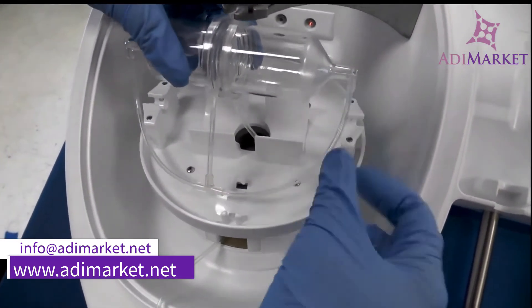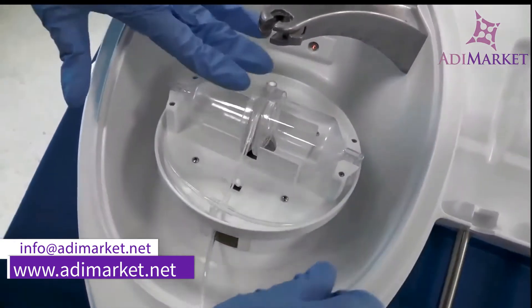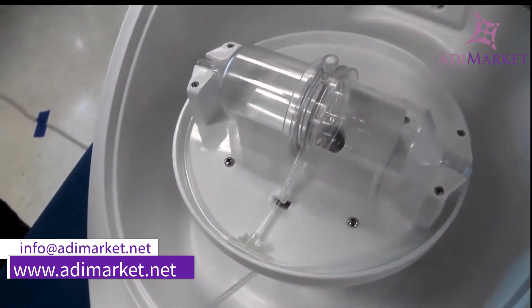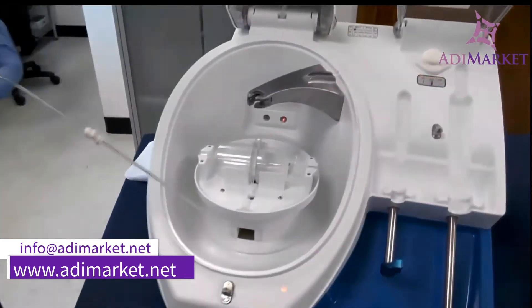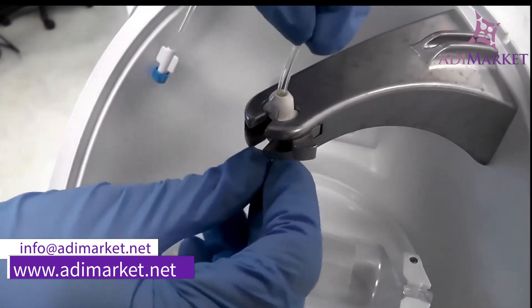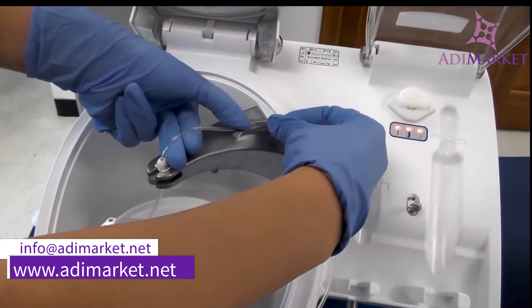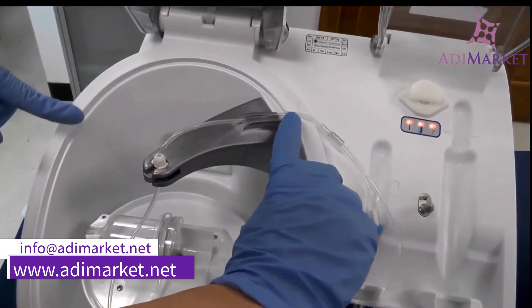With your elbows facing down, place your disposable into the centrifuge and push down until you hear a click. Attach the T to the front teeth and the tubing under the hook. Make sure your tubing lies straight and is not twisted prior to hooking it up top. Place it into its spot, push your lock to the left. You don't want your tubing pulled too tight or too loose, so take two fingers, put your tubing in place, and make sure your tubing is within that divot.